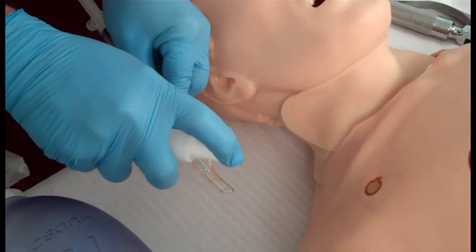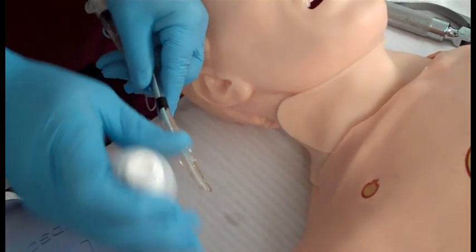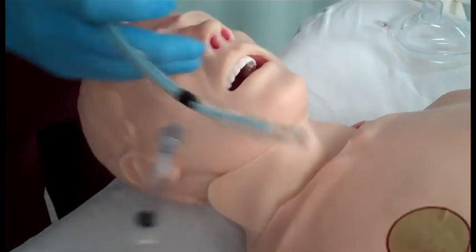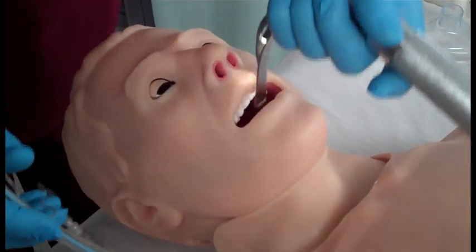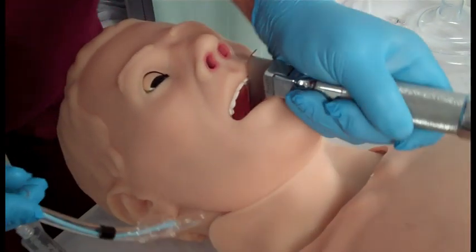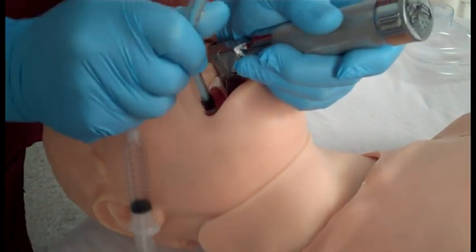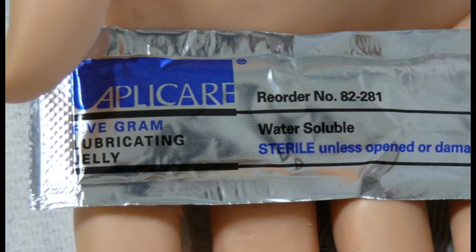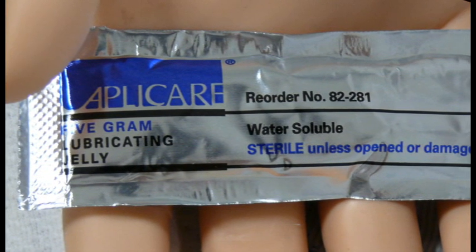So let's talk about his functionality. Hal can be intubated orally and nasally through both nares, although you need to lubricate the airway adjunct with silicone oil prior to any intubation attempt. Otherwise, intubation will be very difficult and is likely to result in damage. Do not use lubricating jelly on any of the mannequins, as it is very difficult to clean the airways.